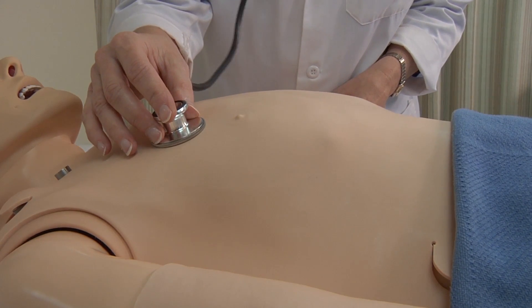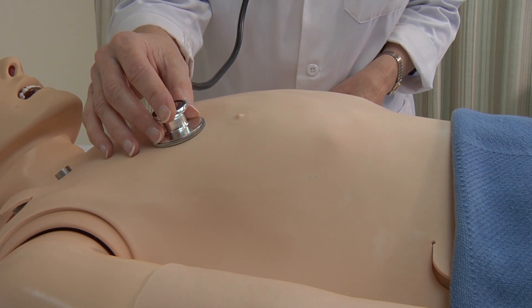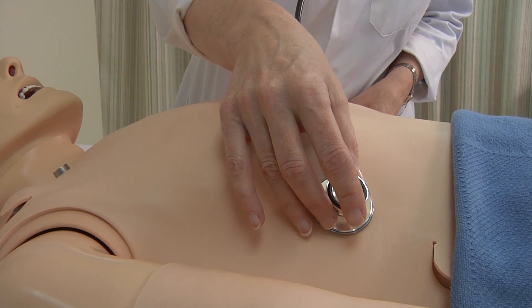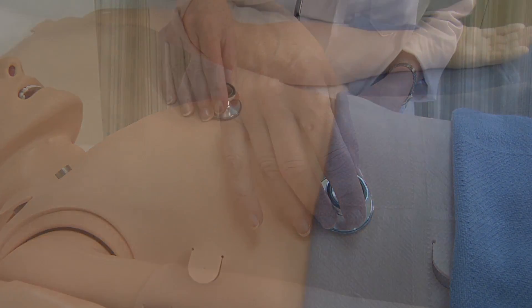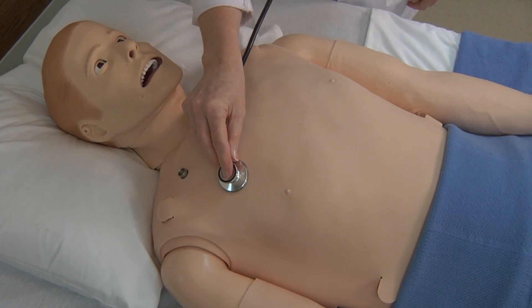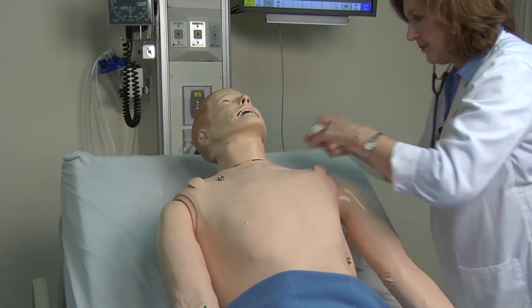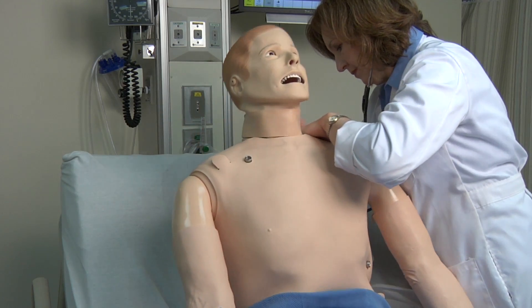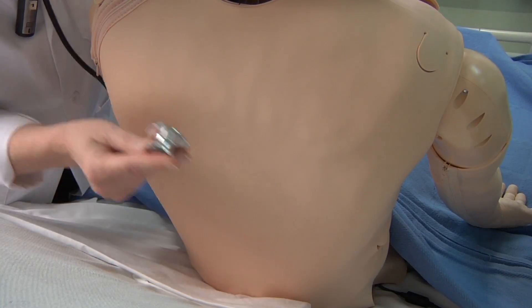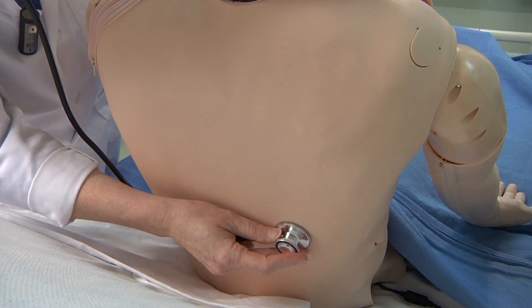SimMan 3G has a variety of sounds that can be auscultated or heard without assistance. These include breath sounds, bowel sounds, heart sounds, and vocal sounds. SimMan 3G's lung sounds can be adjusted bilaterally or just on one side, and anterior or posterior lobes can be auscultated.